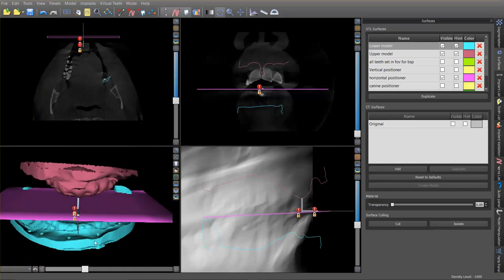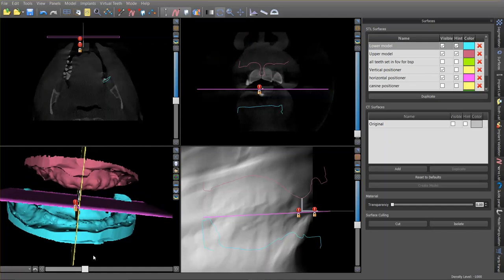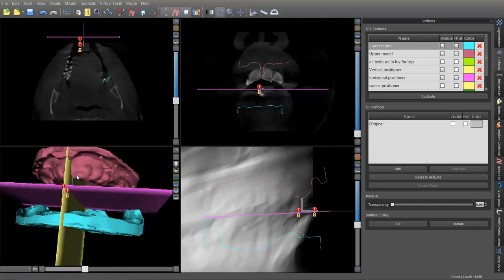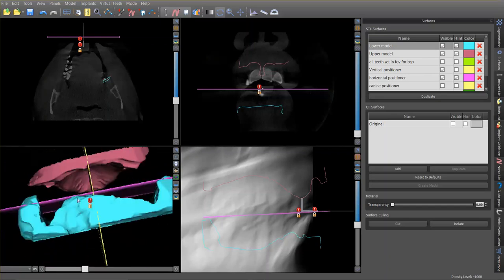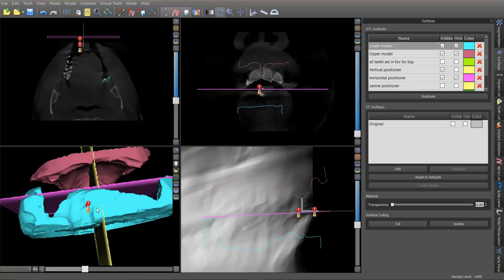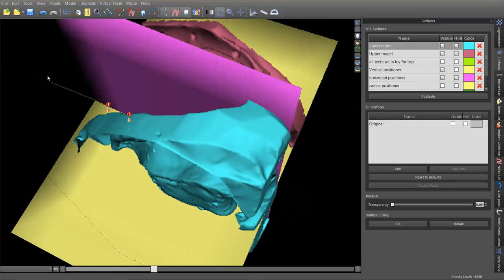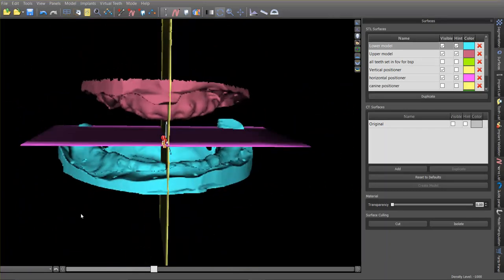To know the vertical or midline position, we import another plane that's 90 degrees to the first one. We position it so it passes directly through the center of the mid-incisive papilla and then goes distally out the midline or palatal suture. Now we've got the midline defined and the occlusal plane defined.